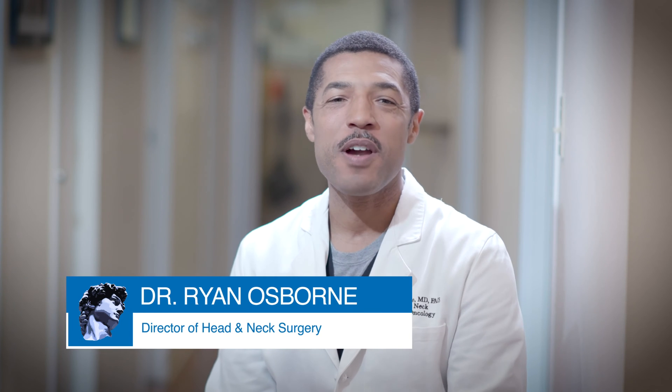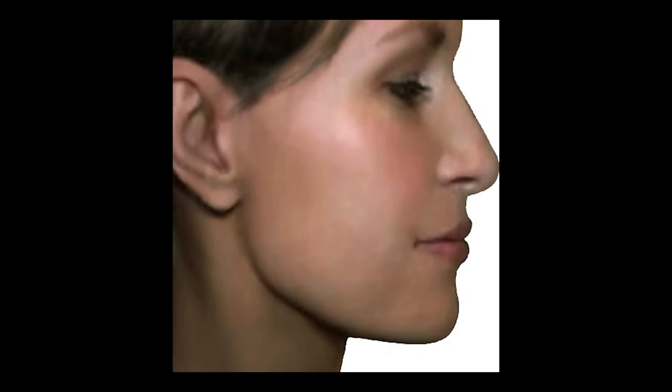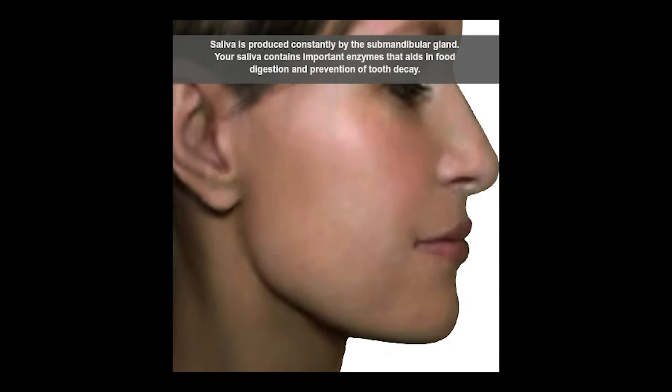Sialendoscopy has revolutionized the way we manage salivary gland problems. This animation will illustrate the role of sialendoscopy in managing submandibular gland stones.